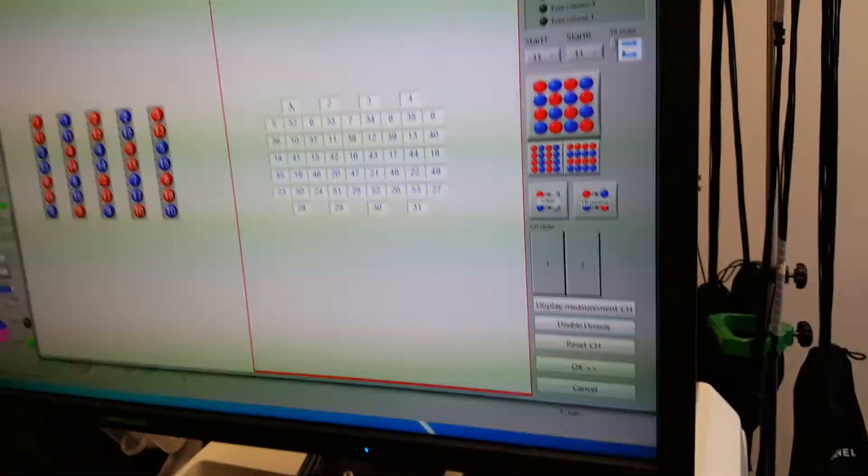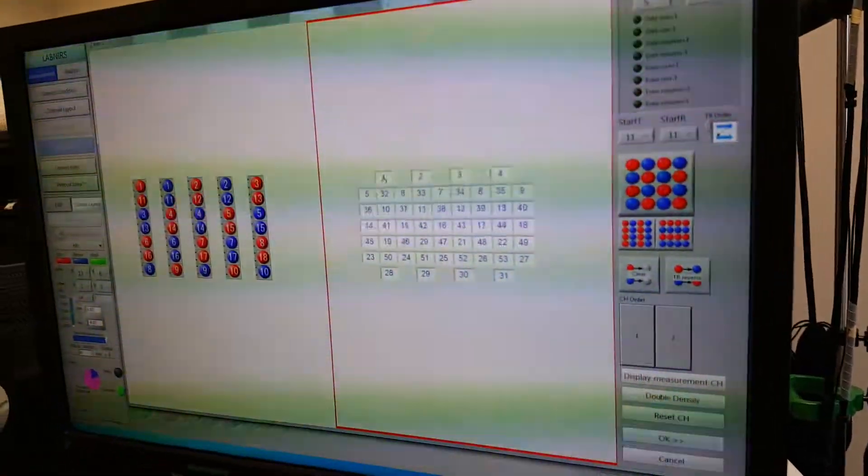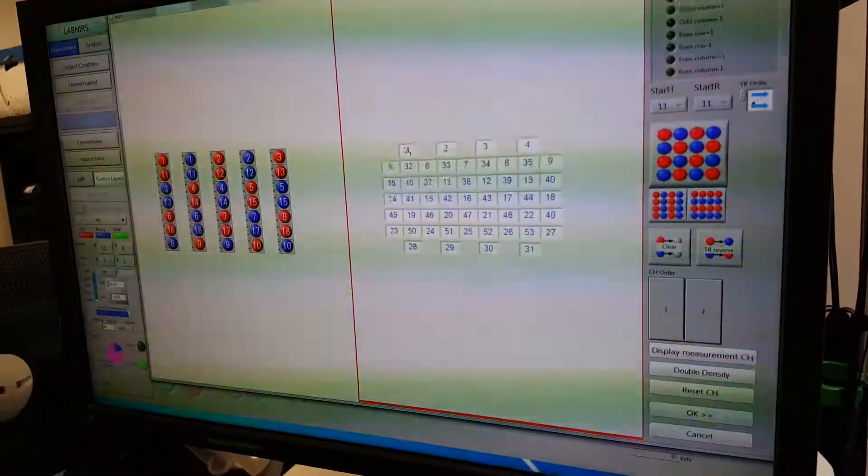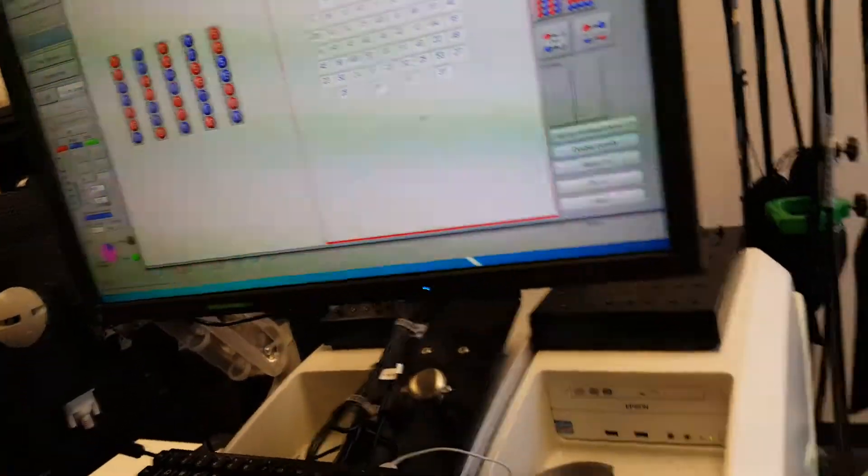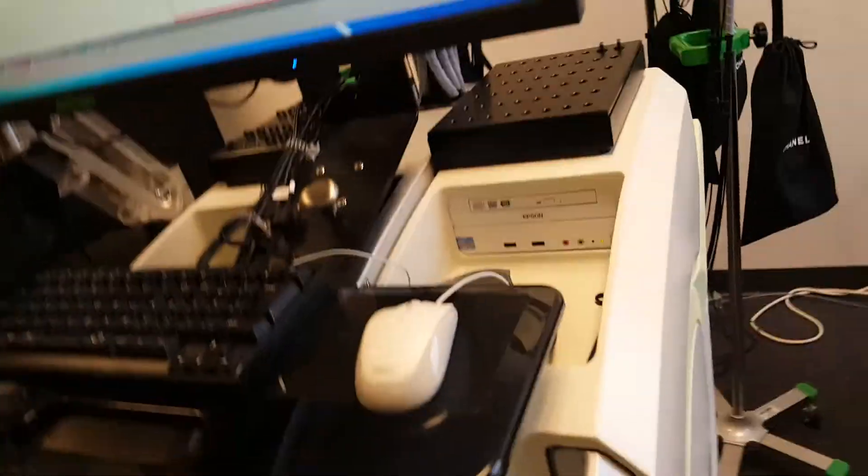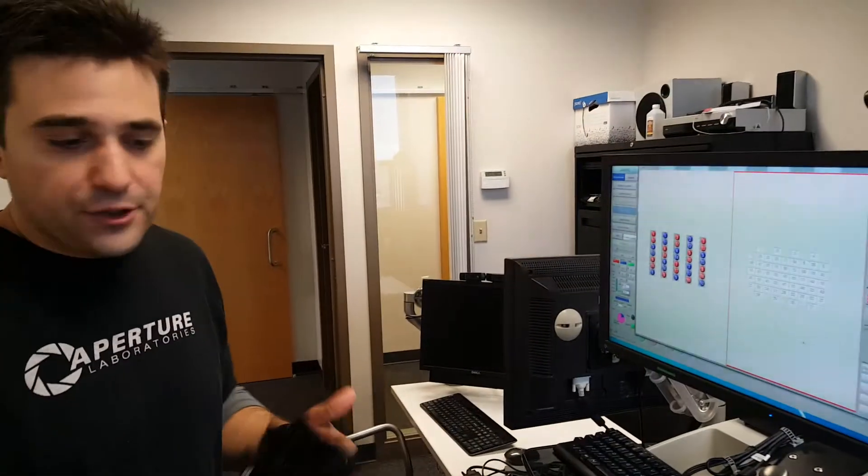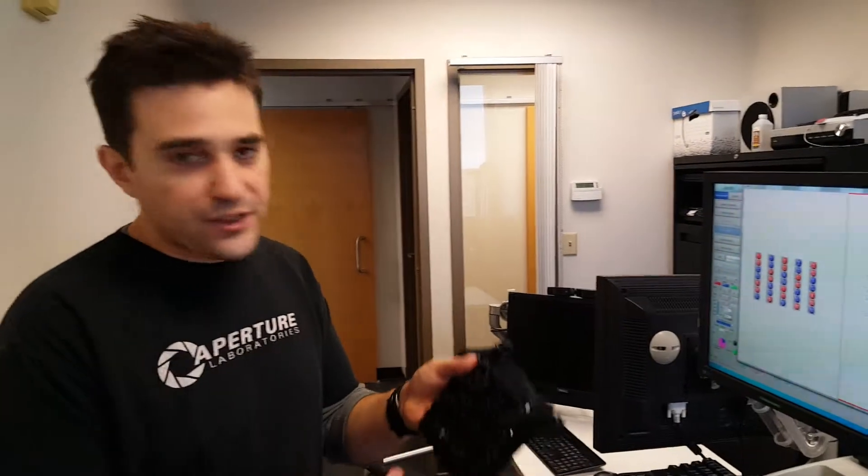So that's how you set it up and the basics can be done. And you can define these patches any way you want, you can build anything you want out of these little plastic pieces. They're provided by Shimazu.